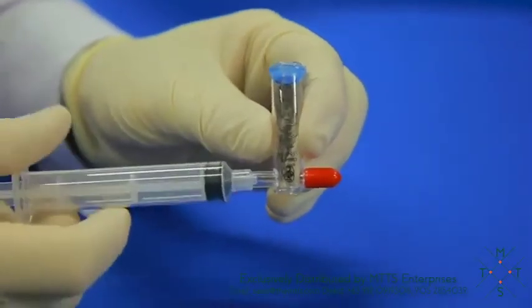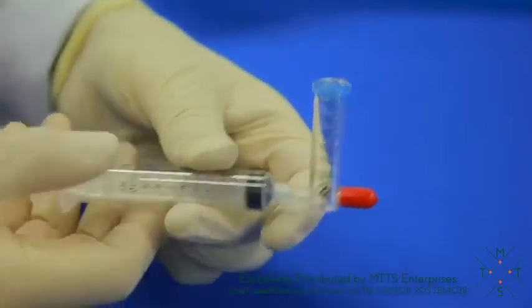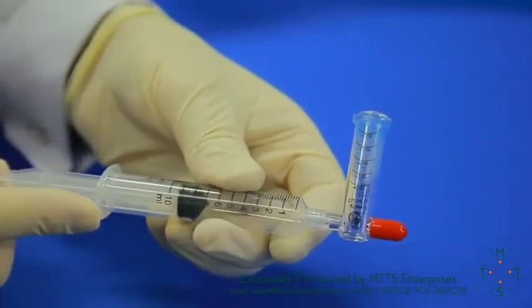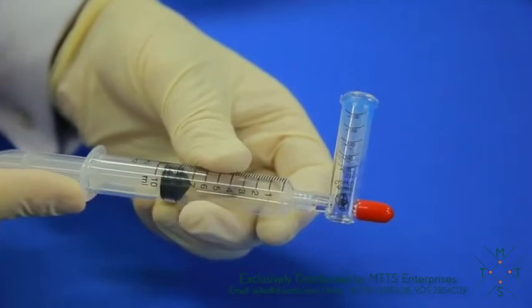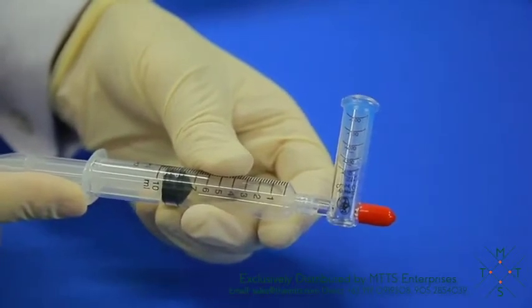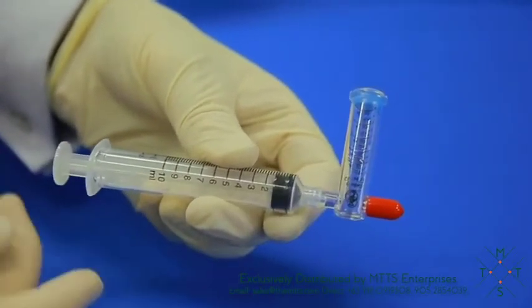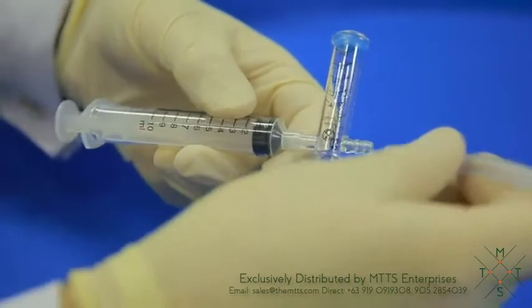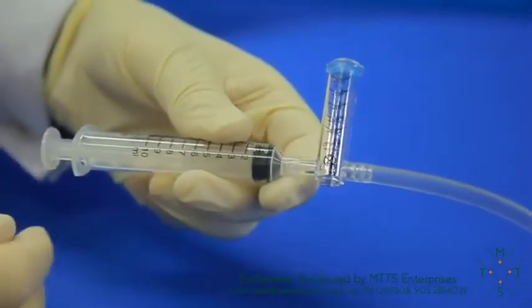To calibrate, connect a syringe onto the syringe connection port and withdraw the syringe plunger until the blue diaphragm reads below minus 300 centimeters H2O. Release the syringe plunger, remove the red cap, and connect tube to the manometer. Calibration is not required between biopsies.